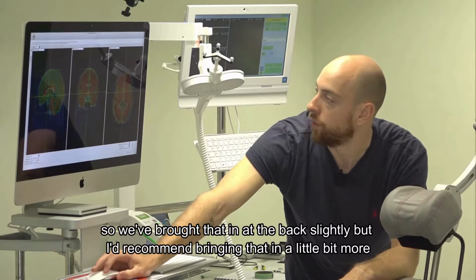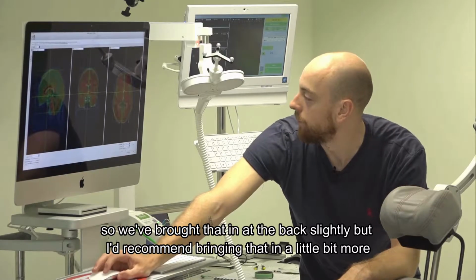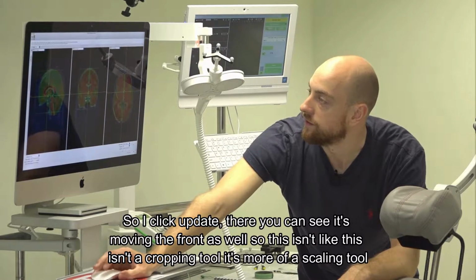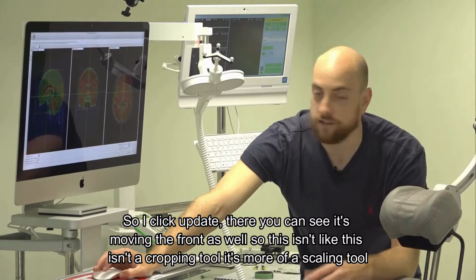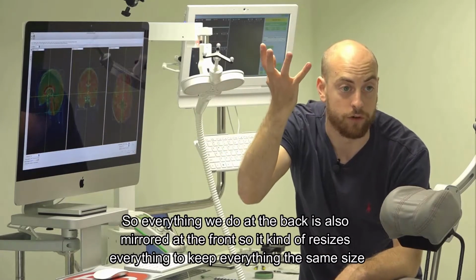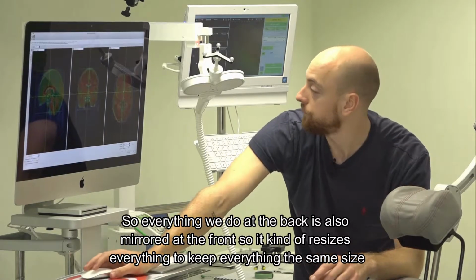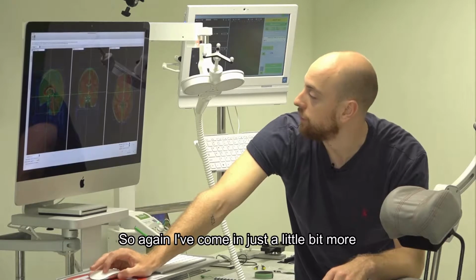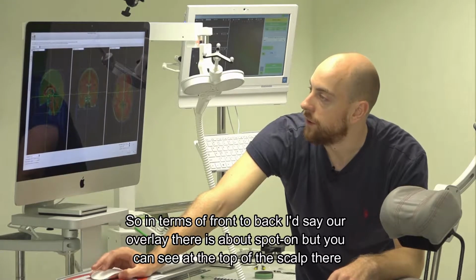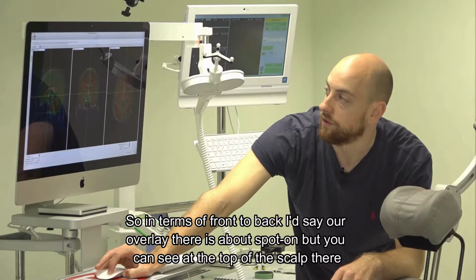You can see we've brought that in at the back ever so slightly, but I'd recommend bringing that in a little bit more. If we click update there, you can see it's moving the front as well. So this isn't a cropping tool, it's more of a scaling tool. Everything we do at the back is also mirrored at the front, so it resizes everything to keep everything the same size. Again, I'd come in just a little bit more. In terms of front to back, I'd say our overlay there is about spot on.